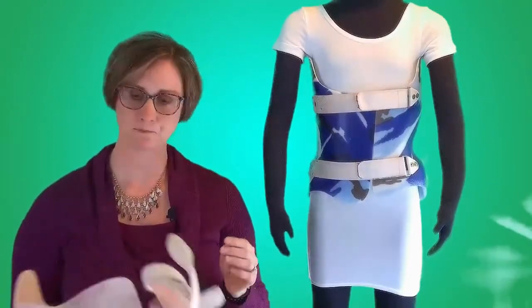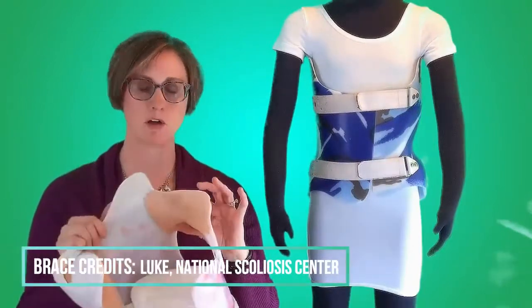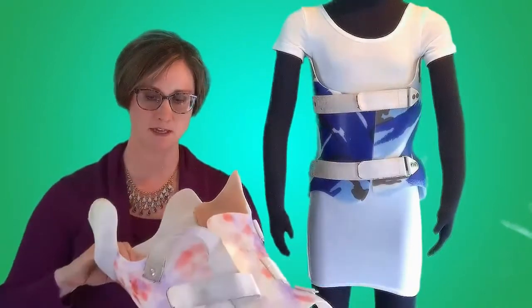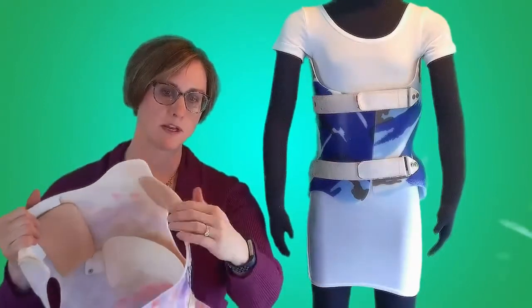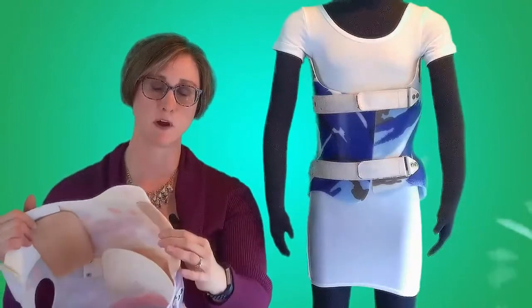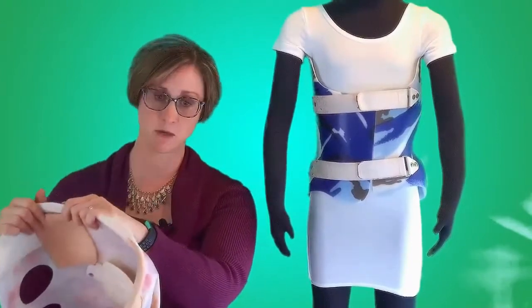Let's take a look at a brace that was made for my daughter. The orthotist used a material called Aliplast. It's a soft, cushiony material that they often use on the inside of braces. He put it around the hard plastic of the armpit so that it almost created a lip around there, which helps to prevent holes.